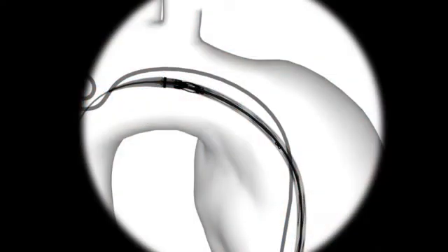Before deployment, confirm the orientation and placement of the proximal end of the stent graft using angiography. The mid-marker figure-8 indicates the position of the connecting bar.